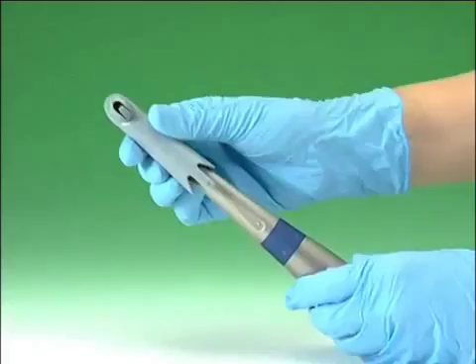We conducted experiments with a high number of patients for the choice of the central incisor colour, using conventional colour chart systems, the SOPRO 717 SOPRO shade concept and the latest generation spectrophotometers.